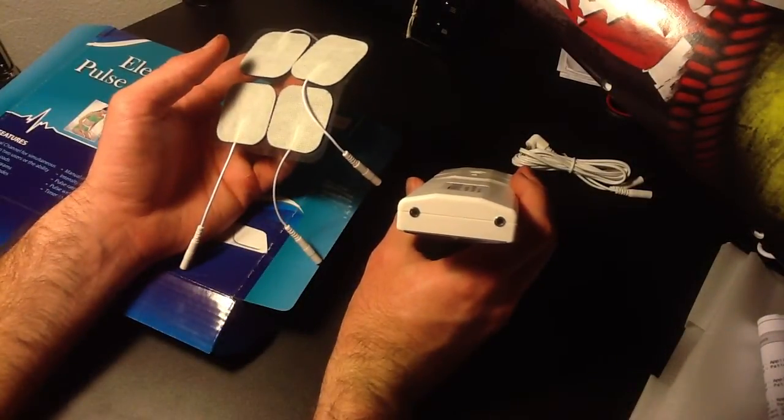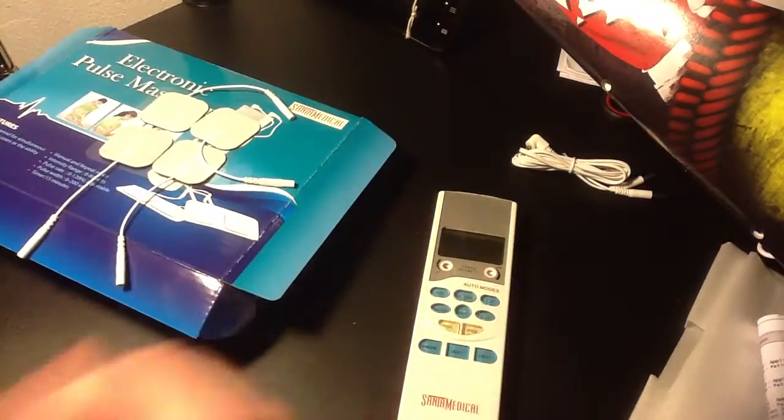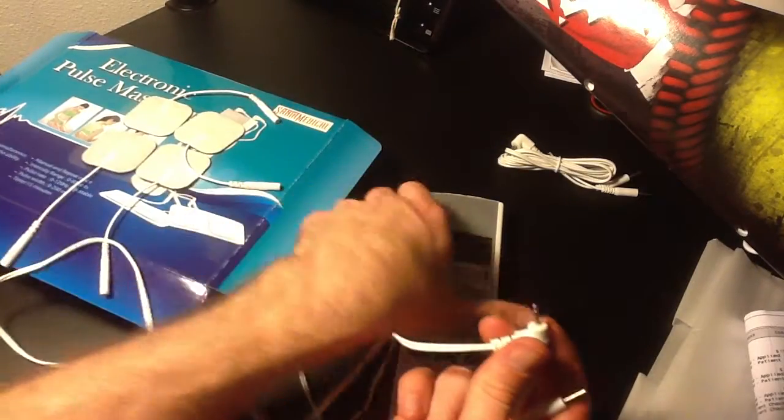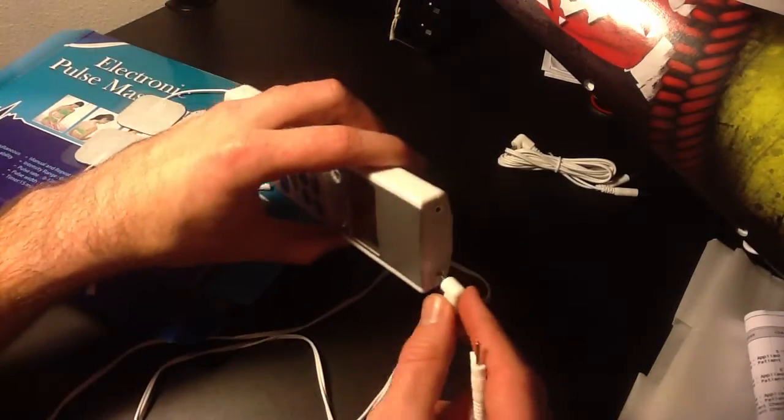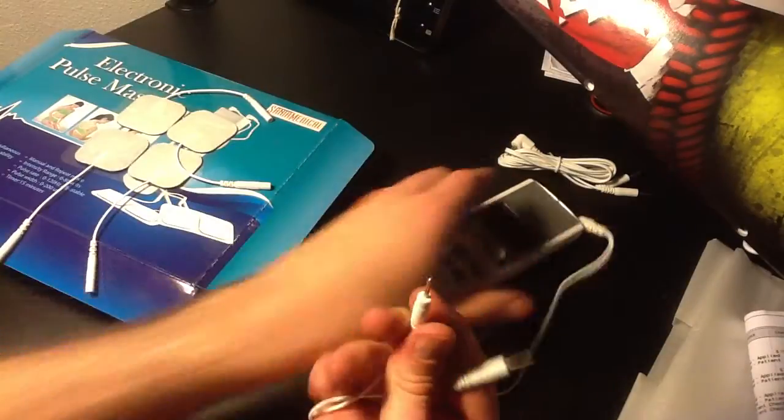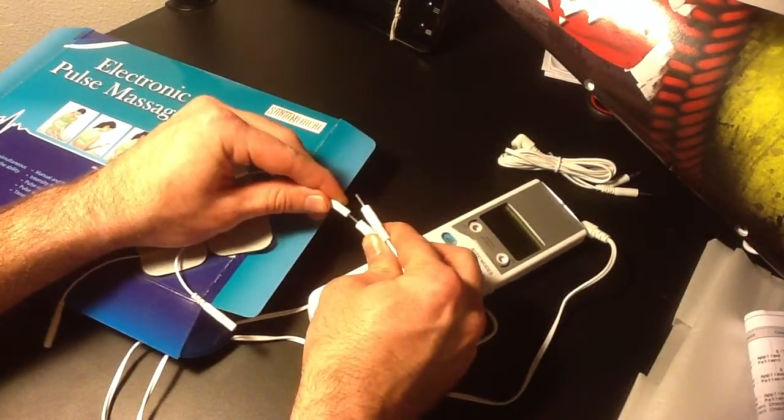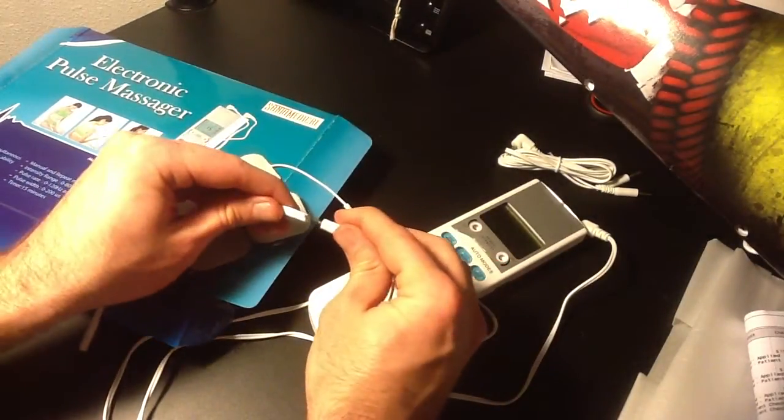By sticking them into that top part via this guy right here. And there are two of these sets. So this piece is going to go right on the top. And then this little device is going to go into one and the other one here.